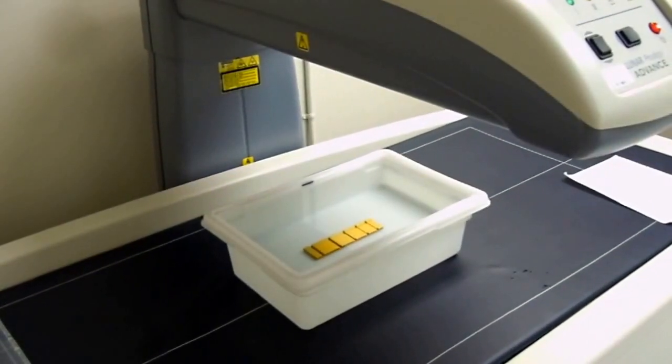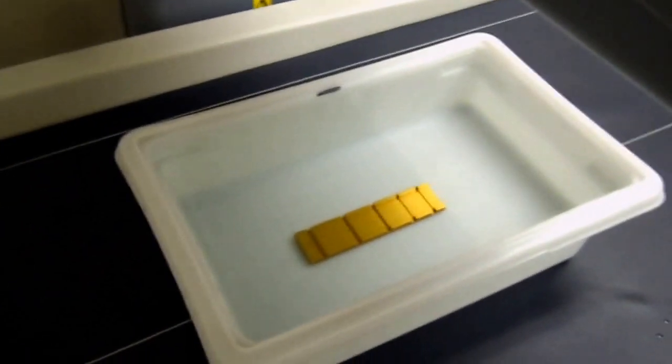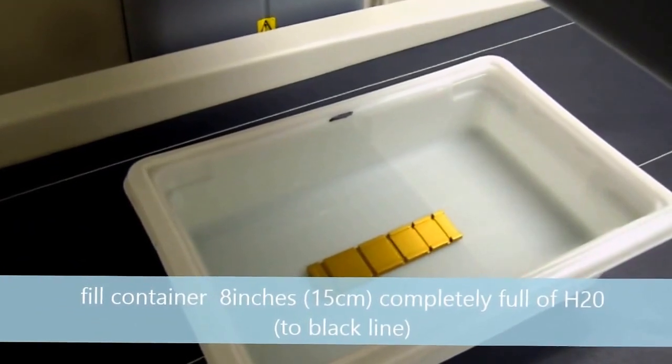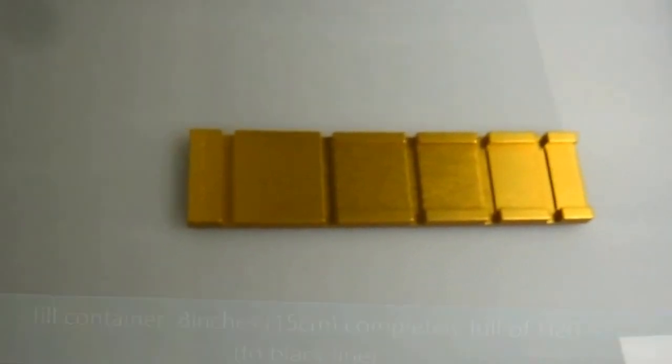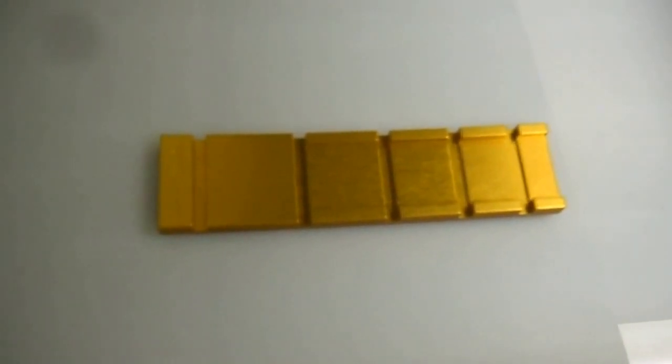Spine phantom test for bone density scheme. Here we have a container full of water, actually 15 centimeters of water in a plastic container, and inside is the spine phantom with the serial number.